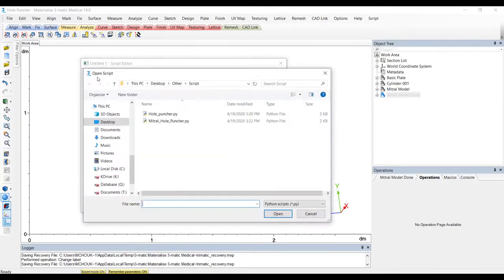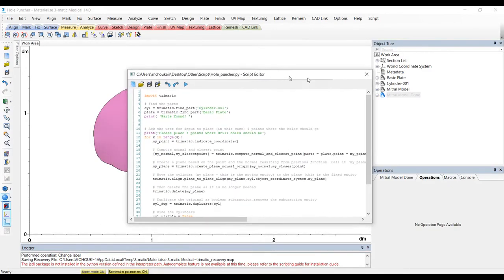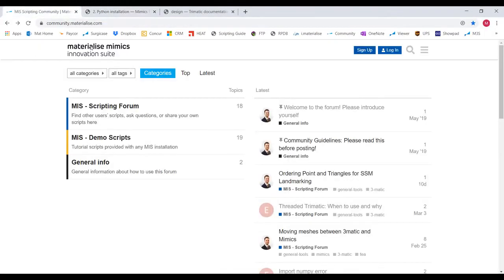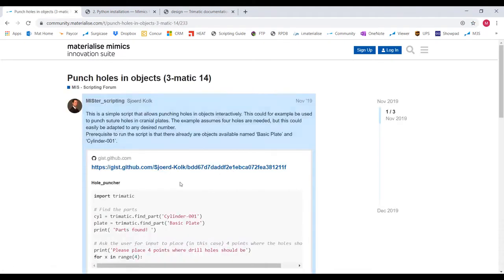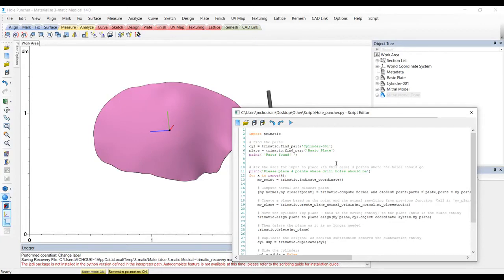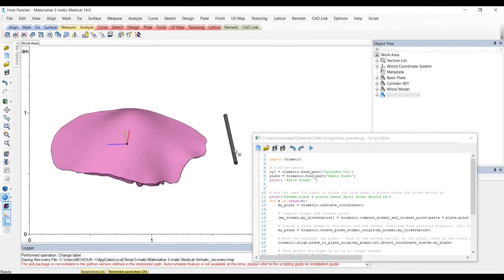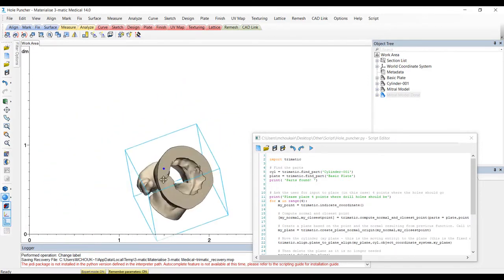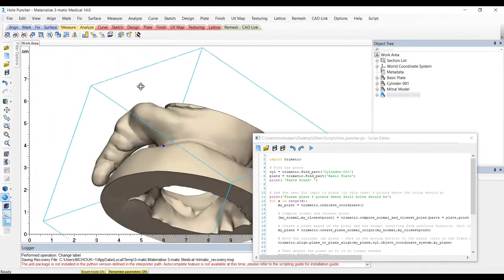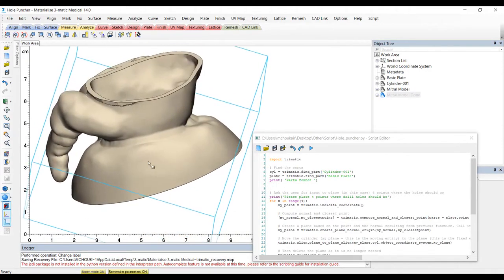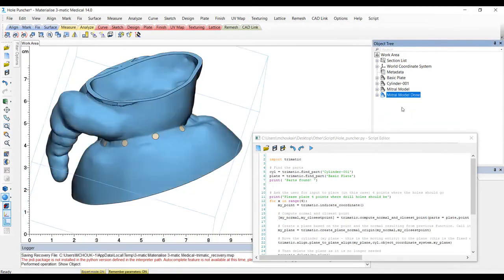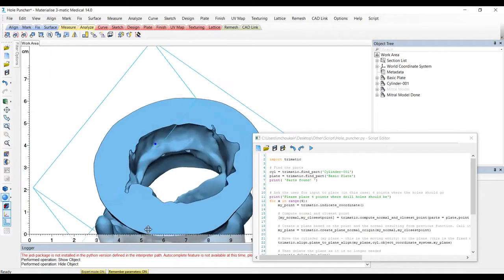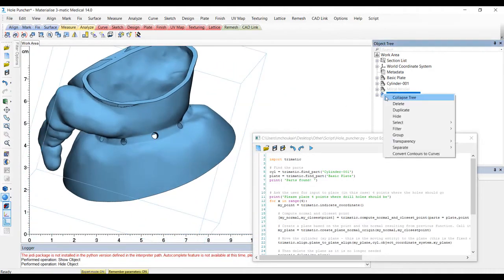From the script tab, I'll use the toggle editor to view my entire script. This script is based on an existing script I found from the community website that I saved or copy pasted. In the existing script, it wants us to use this cranial plate and this cylinder to punch holes through it. However, my application involves punching holes along a mitral annulus to create suture holes when I go to 3D print this model for physicians to practice on. So my goal here is to change this existing script that does mostly similar steps that I need, but apply it to my application with the mitral model and hopefully get something that looks like this.